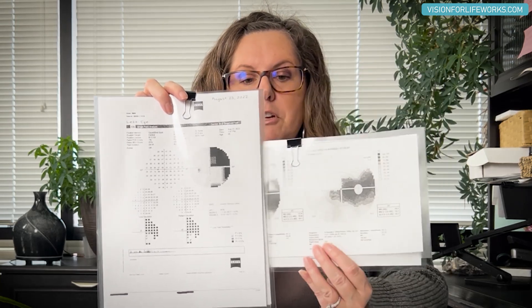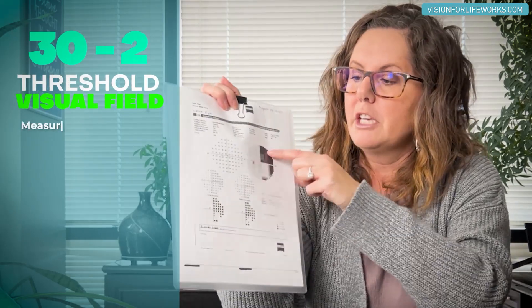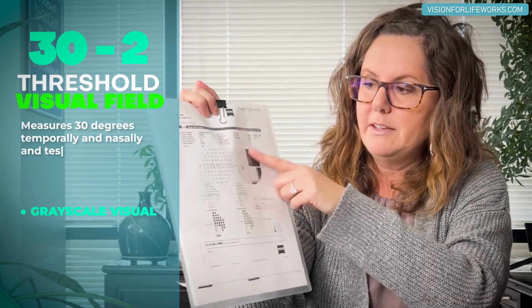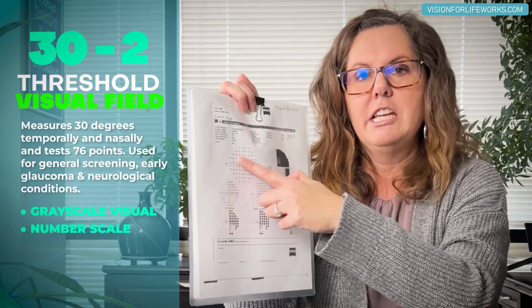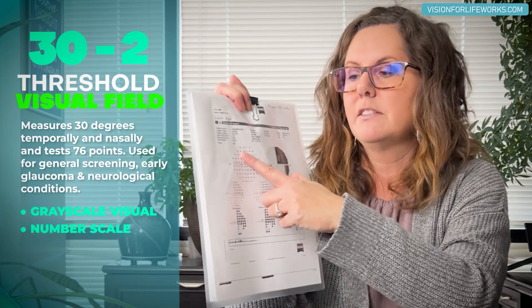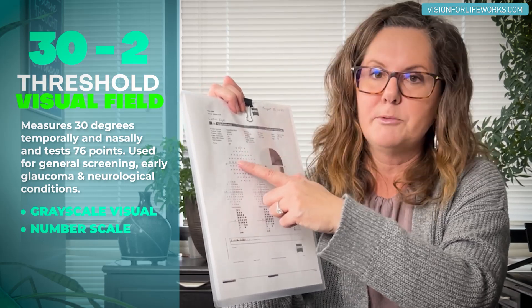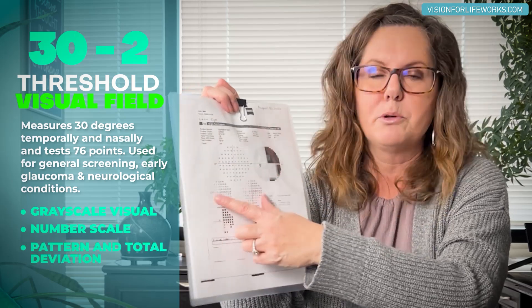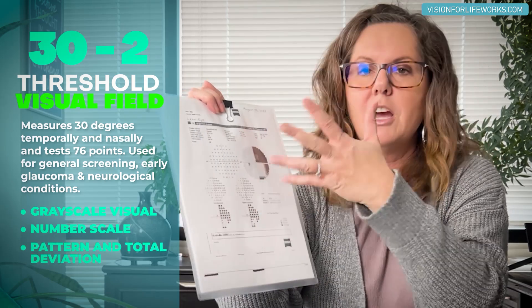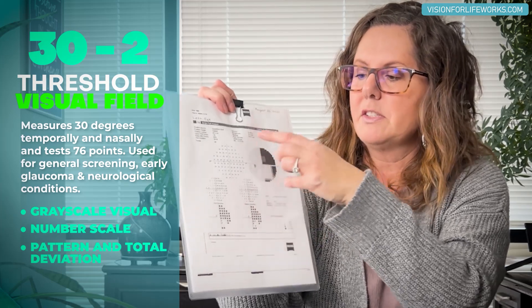That would be this one right here. There is a large difference between this visual field and that other one. This one is called the 30-2 threshold visual field. You get this lovely grayscale, you get a number scale that tells you how sensitive you are — the amount of sensitivity to the object that was being flashed to you — and then you have pattern and total deviations down at the bottom.